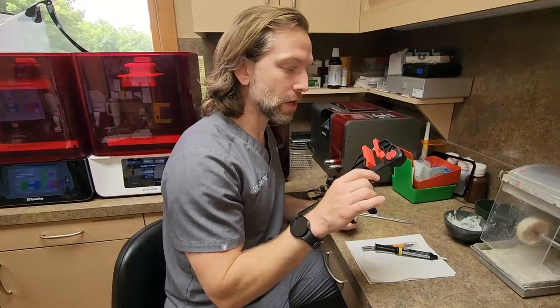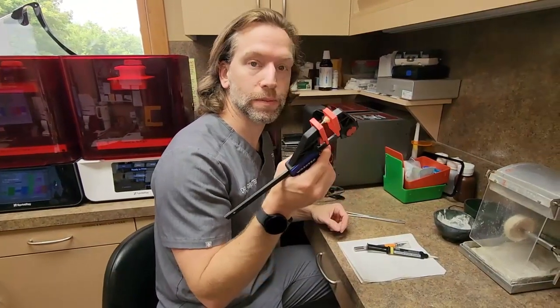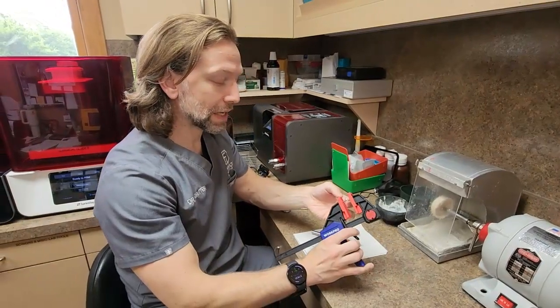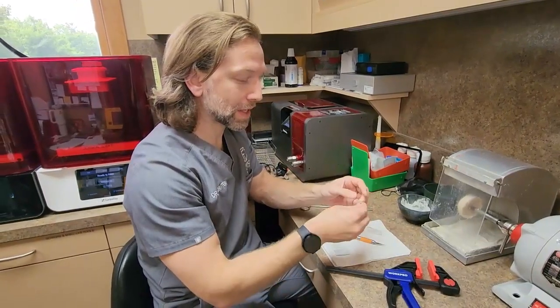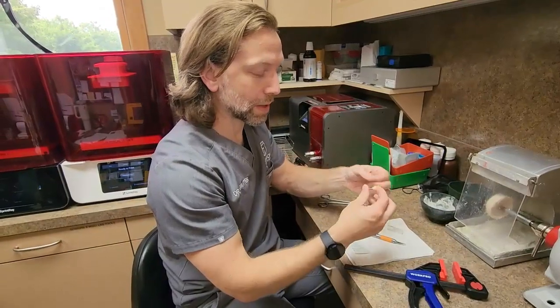In the second half of the video, I'll come back in about ten minutes or so to show you how I then clean off this cement. So I came back — it's been a while. One thing you may notice if you've done this before is that I do not clean off the cement with a cotton roll or anything. I wait until it's all set. It gets a little liquidy on the outside, but it's solid.